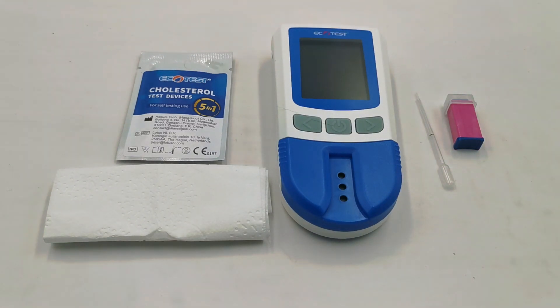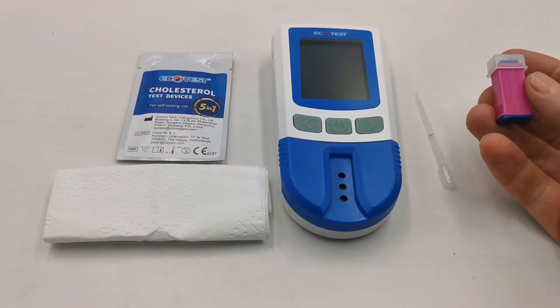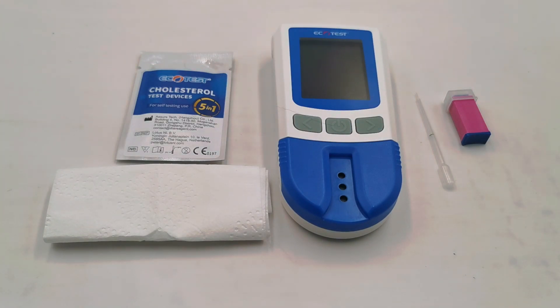If you do not succeed in obtaining a good lance and a full 35 microlitres of sample naturally sucked into the pipette, then you should re-lance and not waste the test device, as inadequate samples are the common cause of erratic or erroneous readings. The lancing device supplied with the meter is a single-use safety lancet. Also have handy a little pad of cotton wool or tissue paper — this is used to wipe away the first droplet of blood that forms following lancing, and the second droplet is what is used to test using this device.